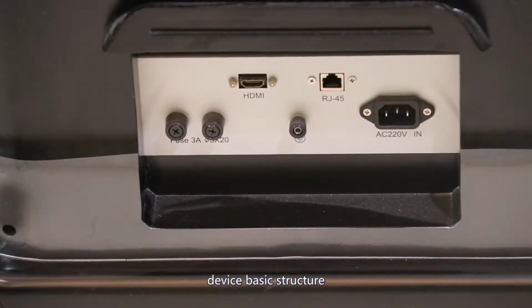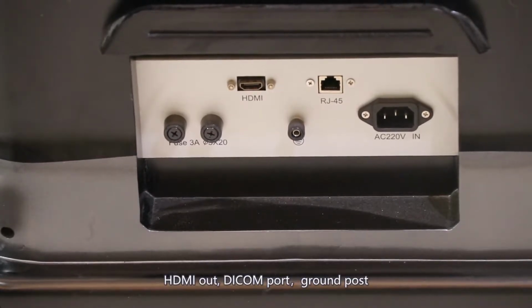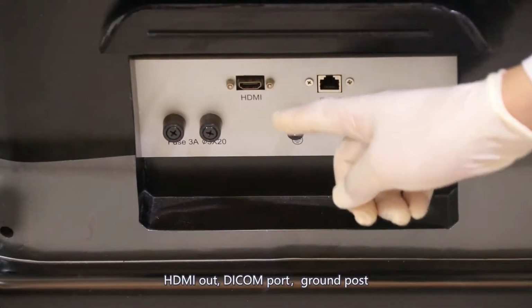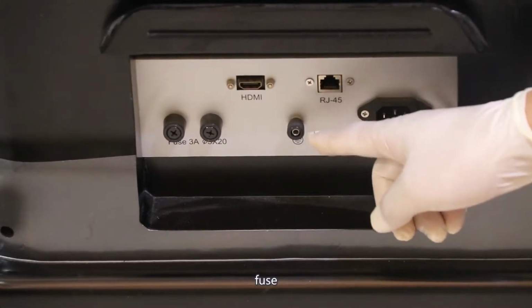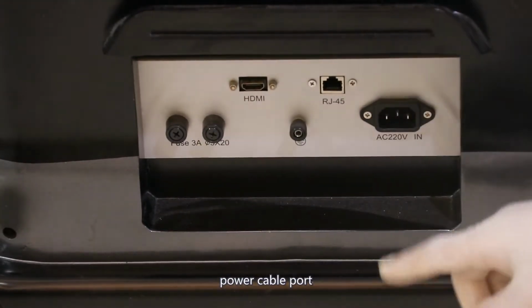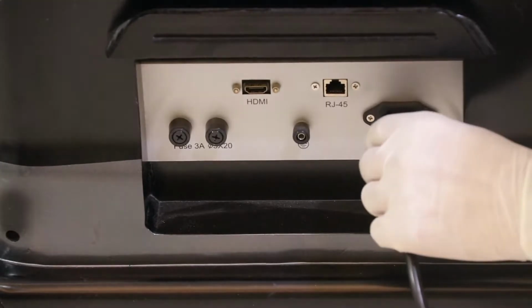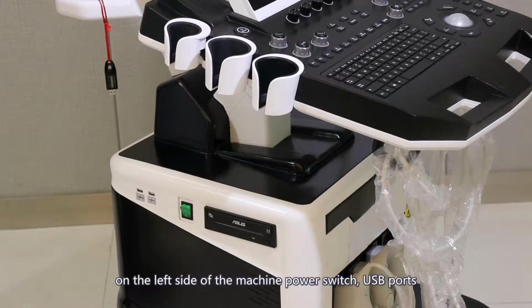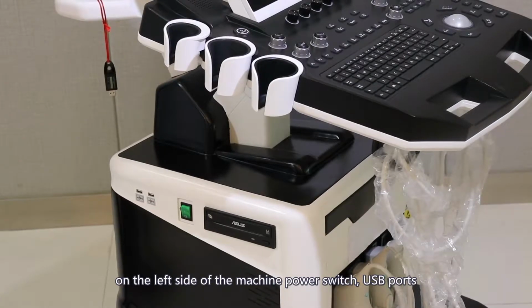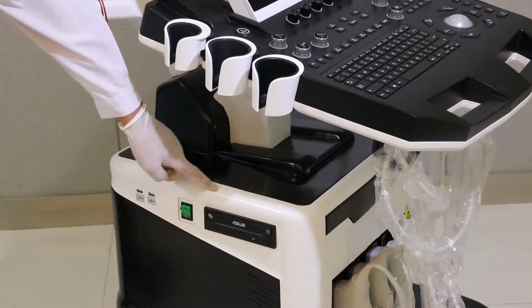Device basic structure. On the back side, there are HDMI out, DICOM port, ground post, fuse, and power cable port. On the left side of the machine are the power switch, USB ports, and DVD drive.